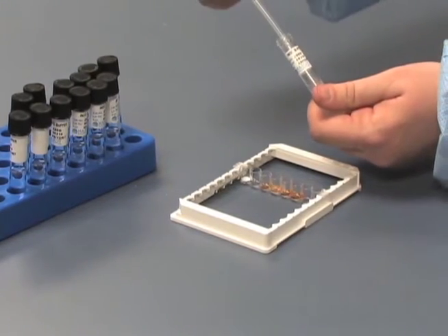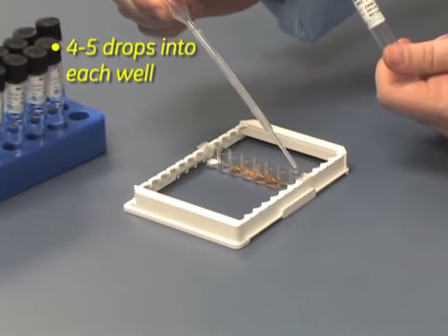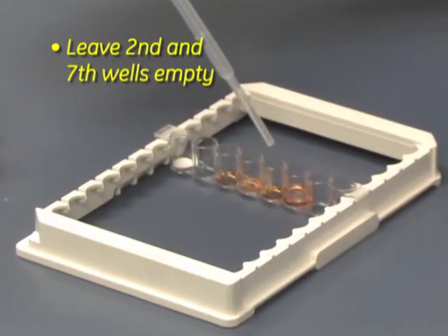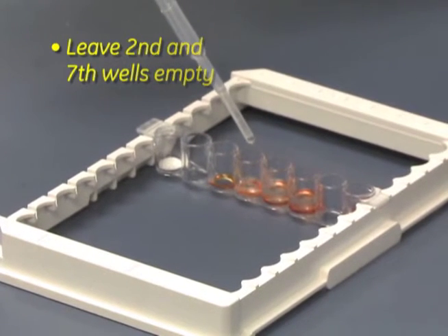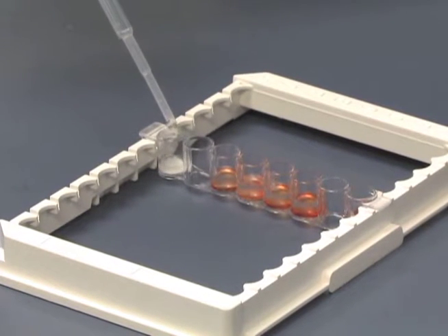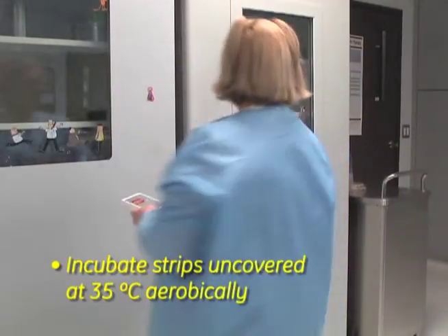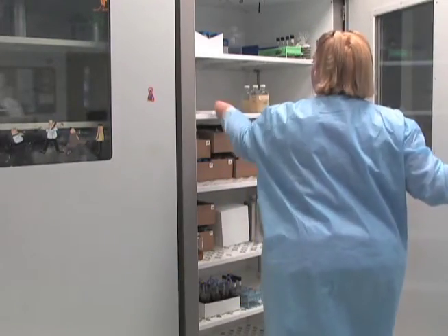Aseptically transfer 4 to 5 drops of the organism suspension into each well of the strip. Leave the second and seventh wells empty. Incubate the strips uncovered in an aerobic incubator — do not use a CO2 incubator.